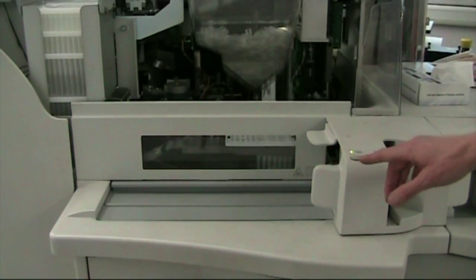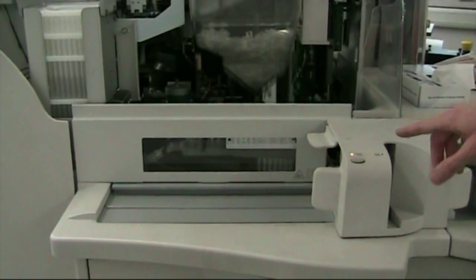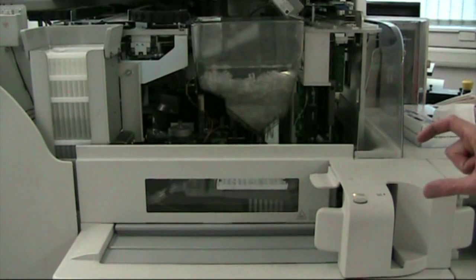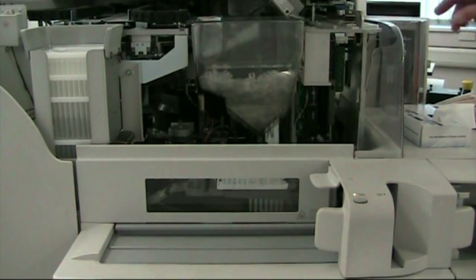So the sample's been taken in. This is the manual sampling from the front of the machine, but the back of the machine also goes out over the track. You can sample calibrators or quality controls from the front of the machine, as well as all patient samples if they're small or precious. But over the back of the track, we've got automatic sampling.